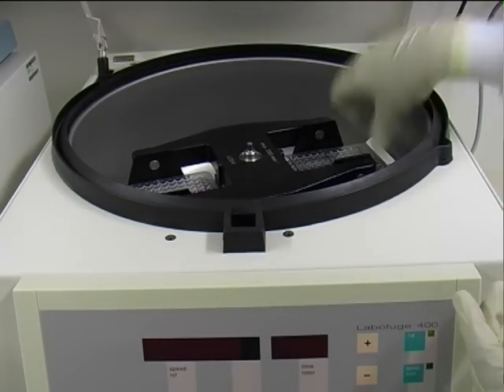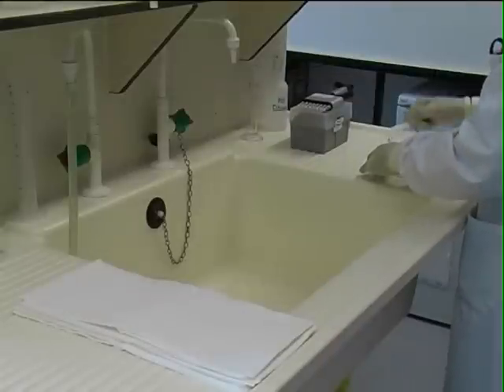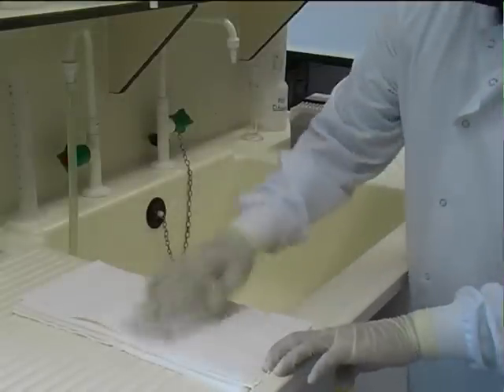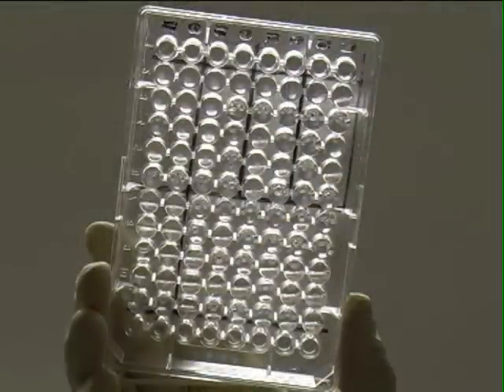After the incubation, the lysate is centrifuged for 15 minutes. While the lysates are spinning, we take the blocked flat well plate from the previous step and discard the buffer, leaving the wells empty.